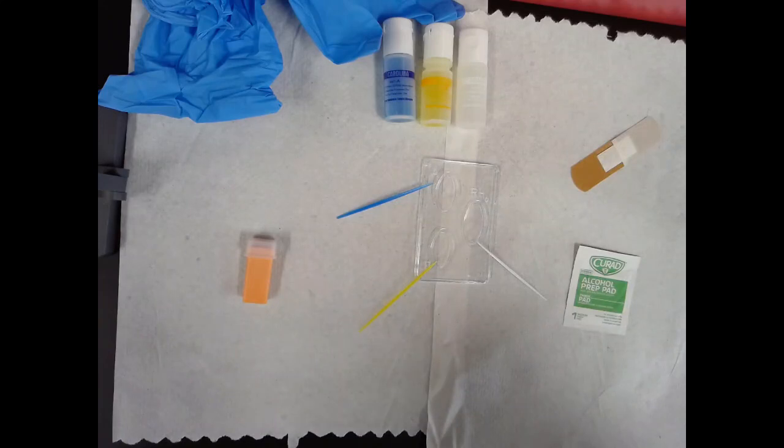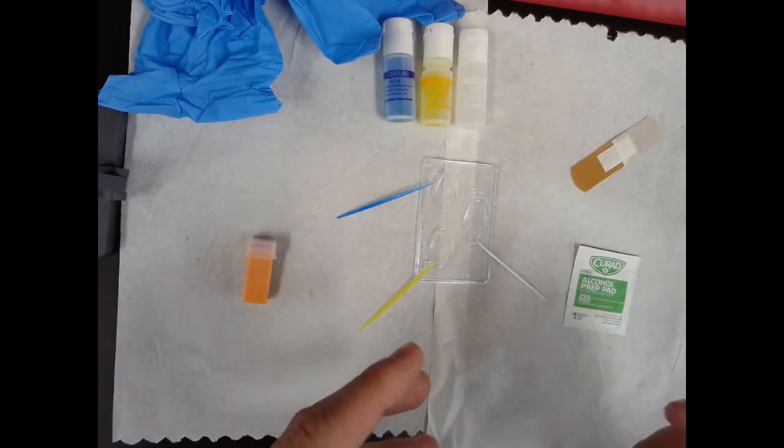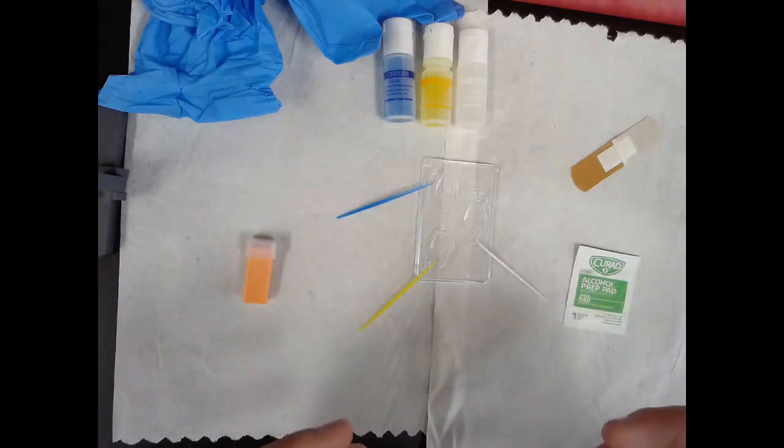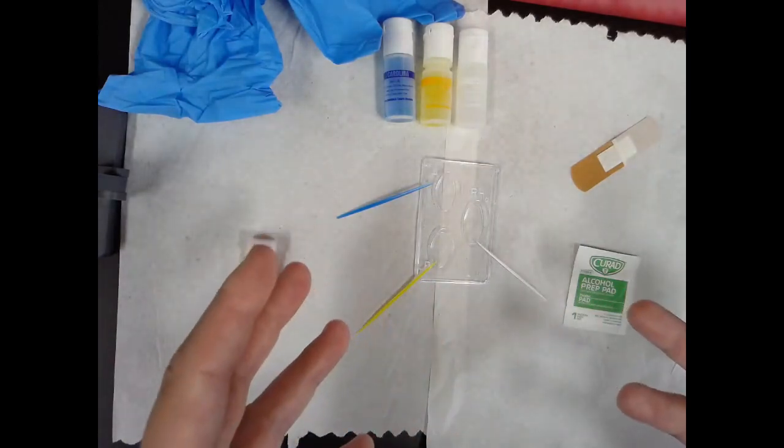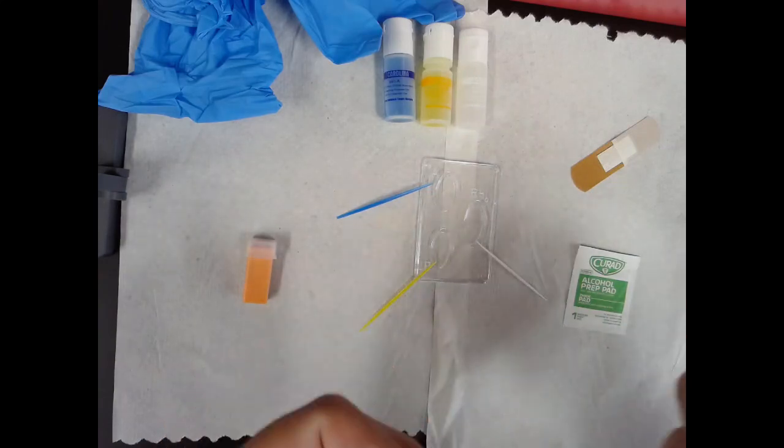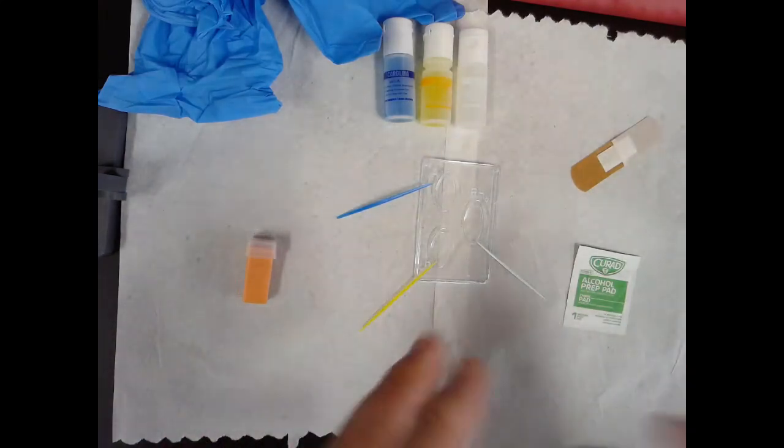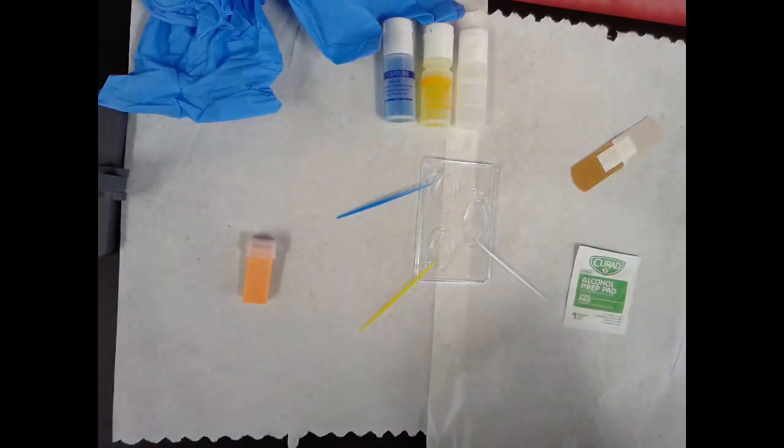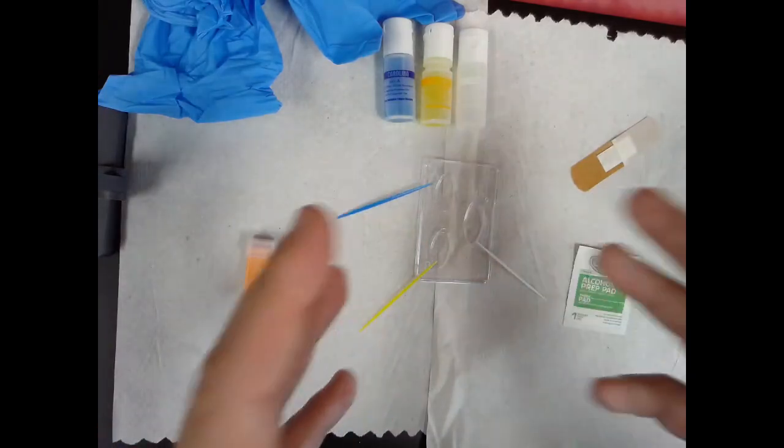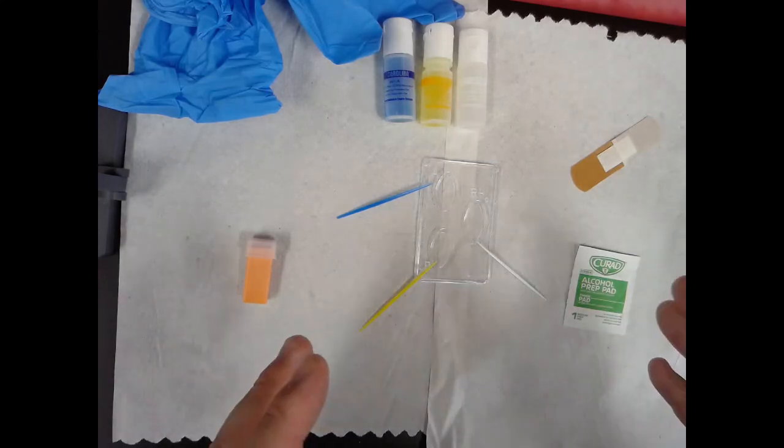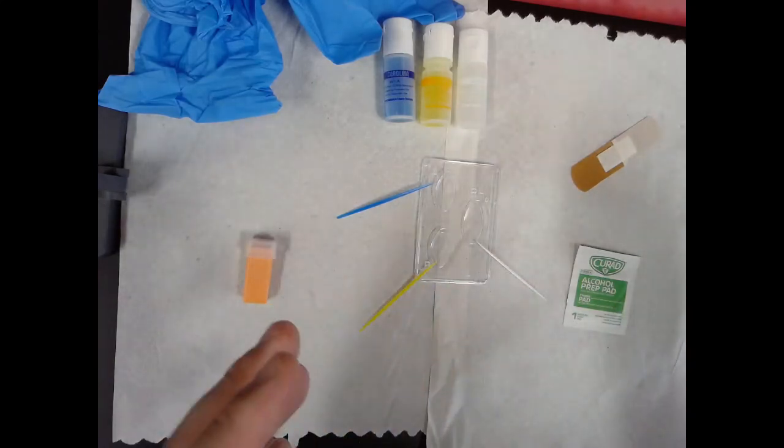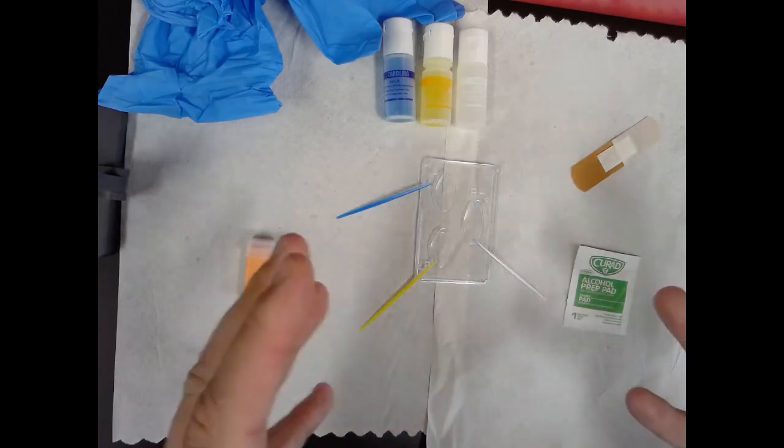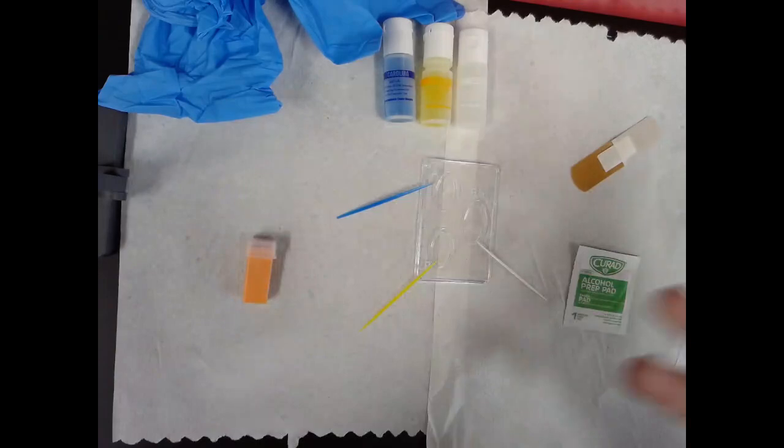Remember, it's important that we get blood types correct when we are going to be administering blood transfusions to make sure we increase people's blood volumes that return them back to normal blood pressure, because if someone does receive the incorrect blood type, antibodies in that person's circulatory system will immediately react to those foreign red blood cells and cause a transfusion reaction. And let's review the lingo just a little bit here. Remember, what we're doing is we are testing to see which antigens are on the outer surface of a person's red blood cells.